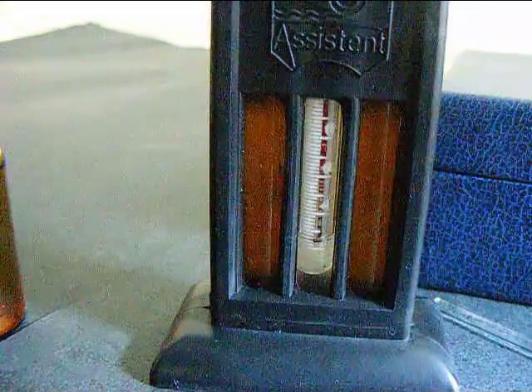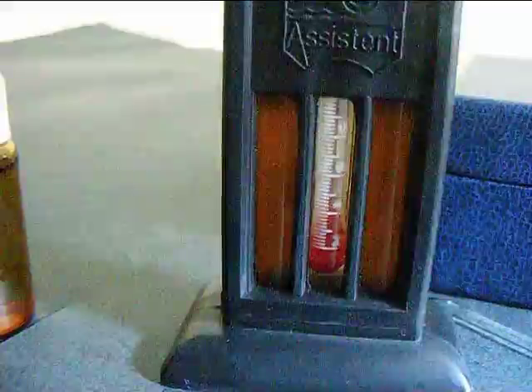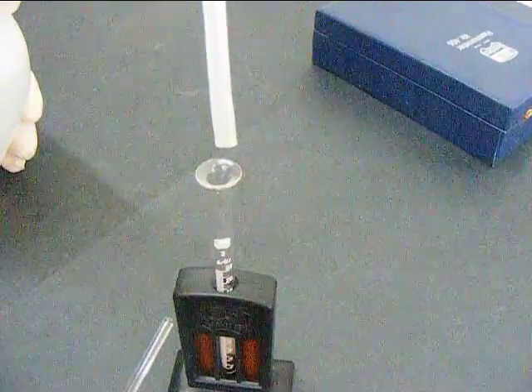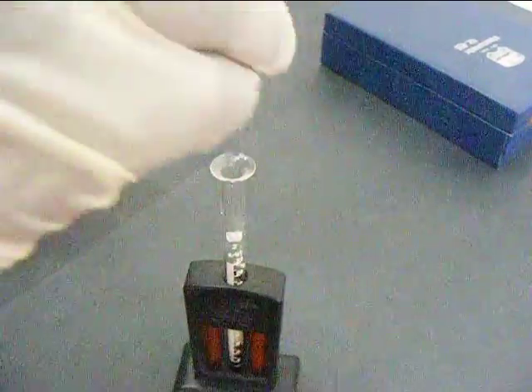The blood is delivered into the glass tube containing the acid. This is then diluted bit by bit with distilled water until the color matches with that in the color matching chamber.